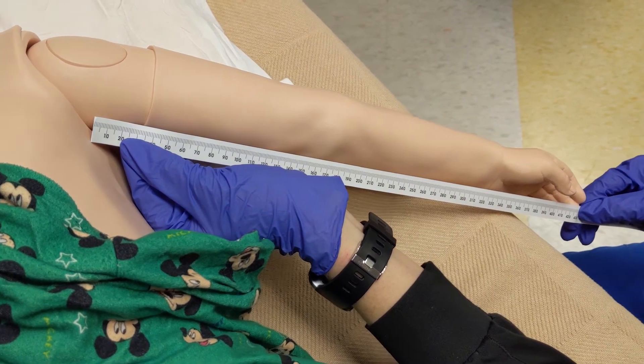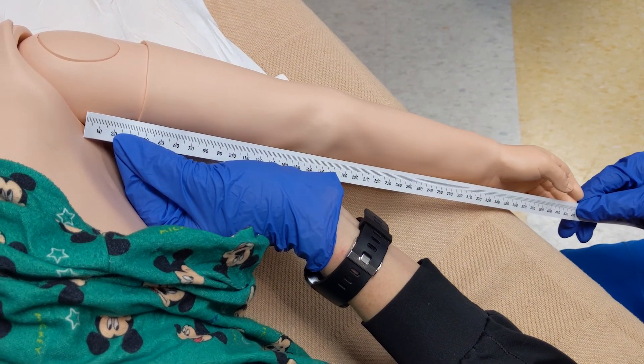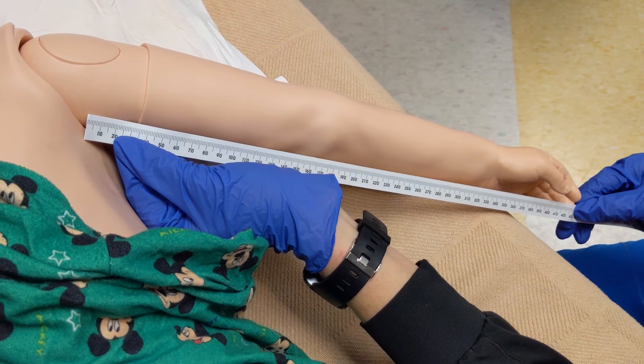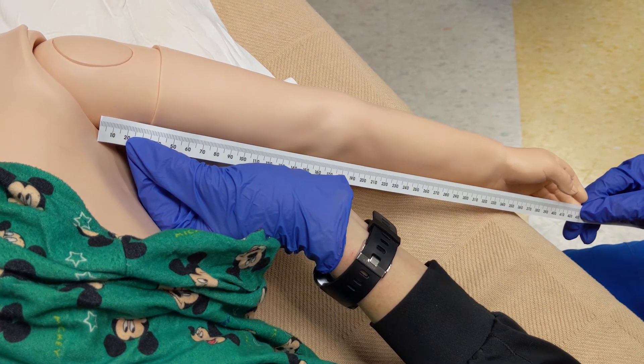After your measurements are complete, make sure you insert the measurements into the patient's record according to your hospital's policy.